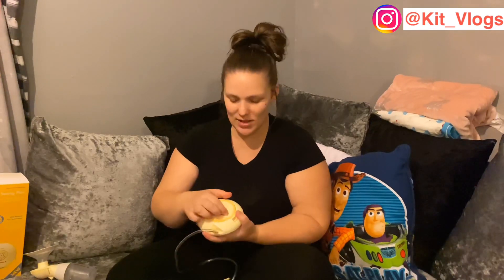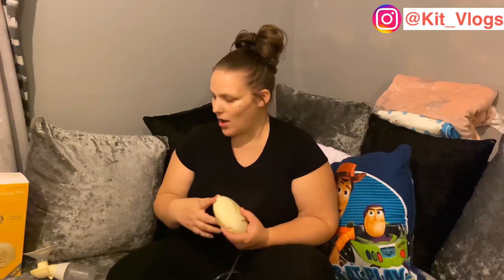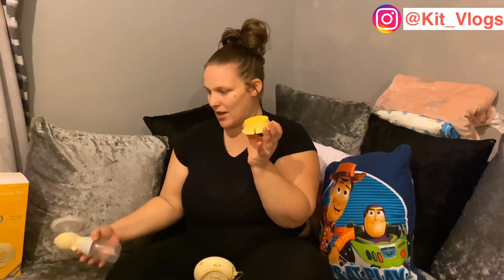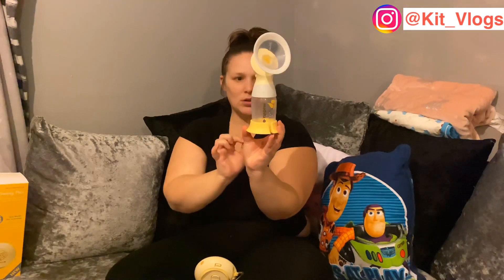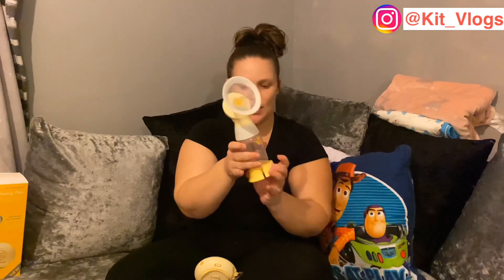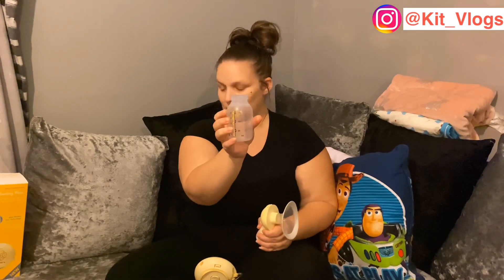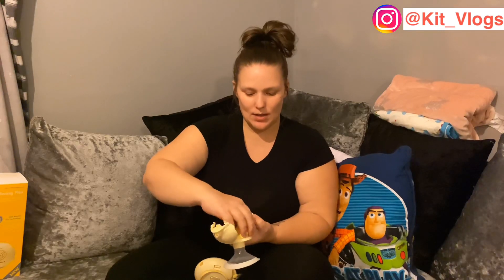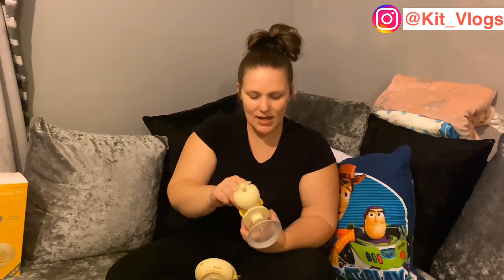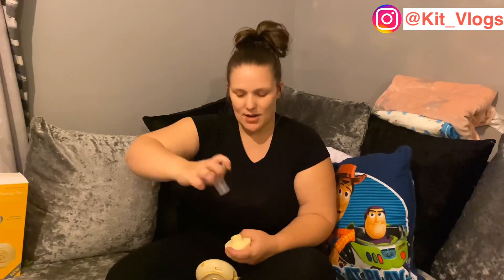It's got a little clip so I can clip it to my belt or wherever. You get a little stand, and once your milk is in the bottle — which it comes with — it stands up. The bottle does have a lid. If you open it up, there's the well inside, so it's easy to clean. I use the Milton's sterilizing cold water sterilizer.